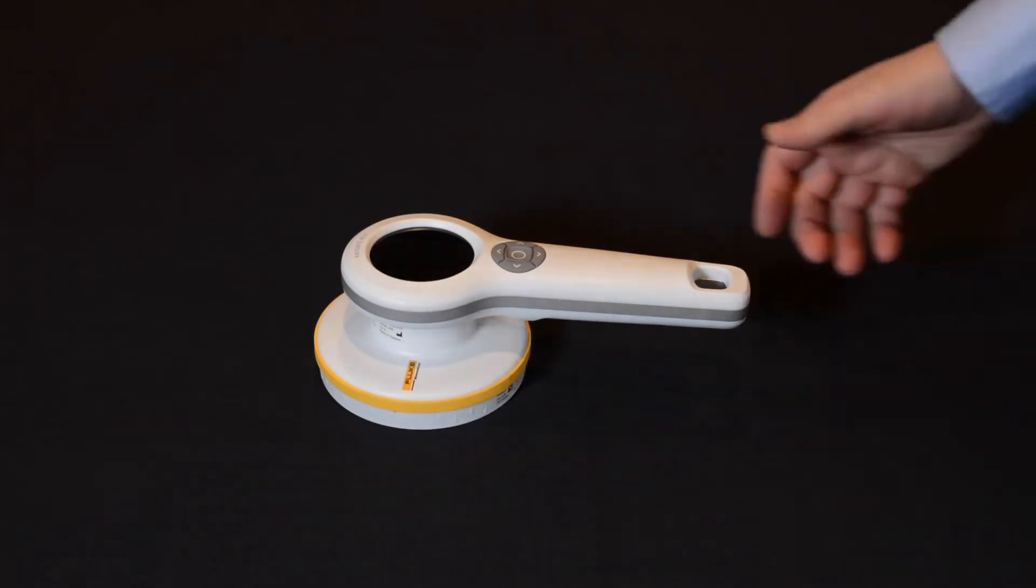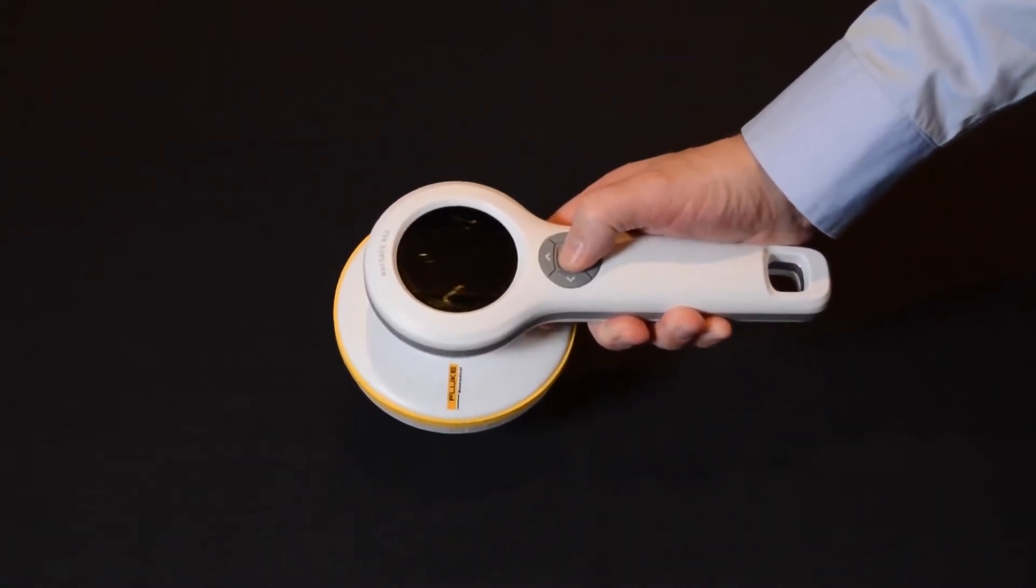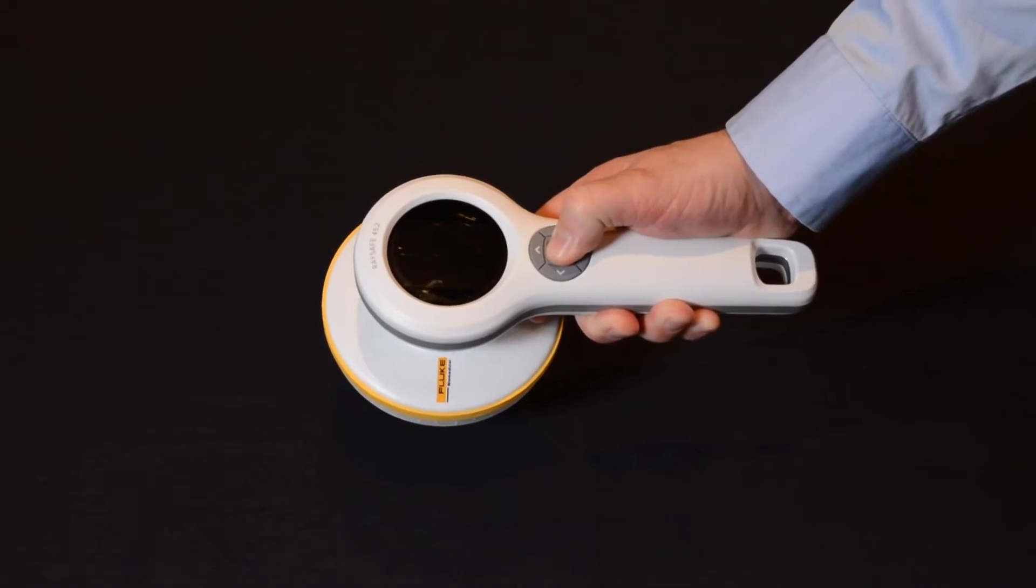This instrument is designed based on what you need as a user and not by the properties of the technique or application. Let me show you how it works.